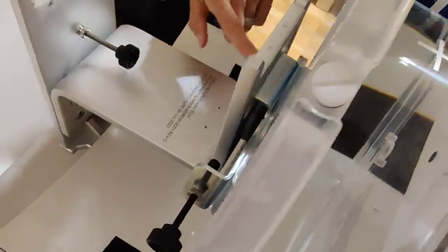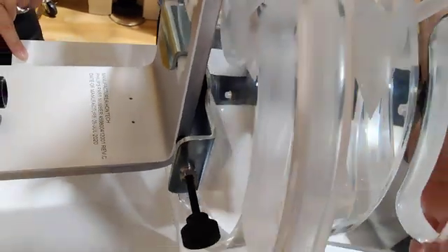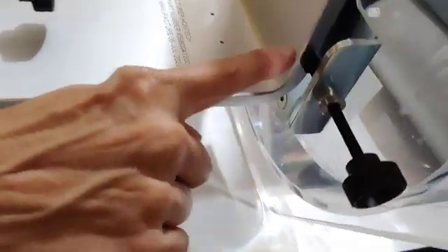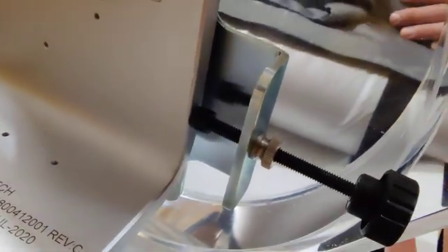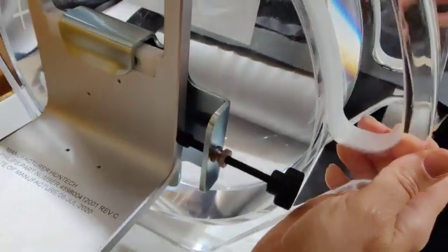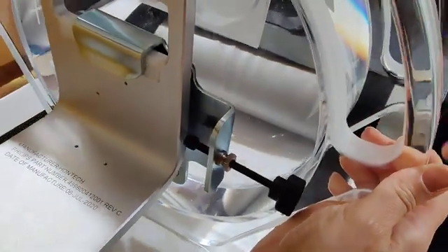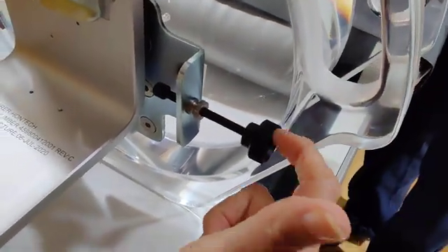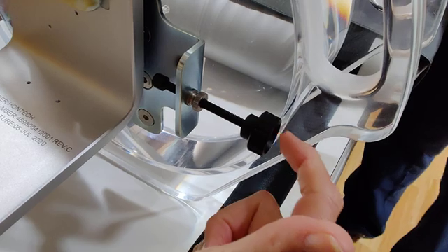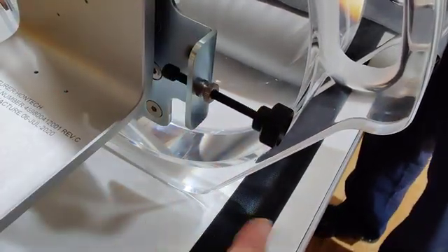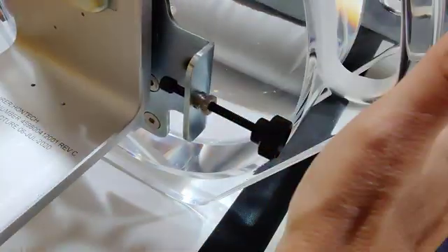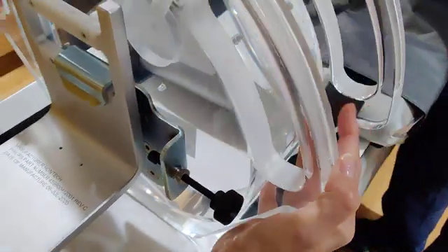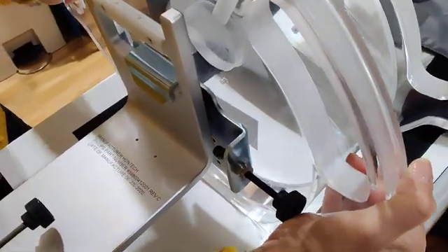Once you put it on, you want to slide it over until it hits. So when you get it on, that's why I don't want you to touch this knob right here - it's positioned where it needs to be. It's just a matter of getting it on like Bill said, and then sliding it over so that it's snug up against the side.